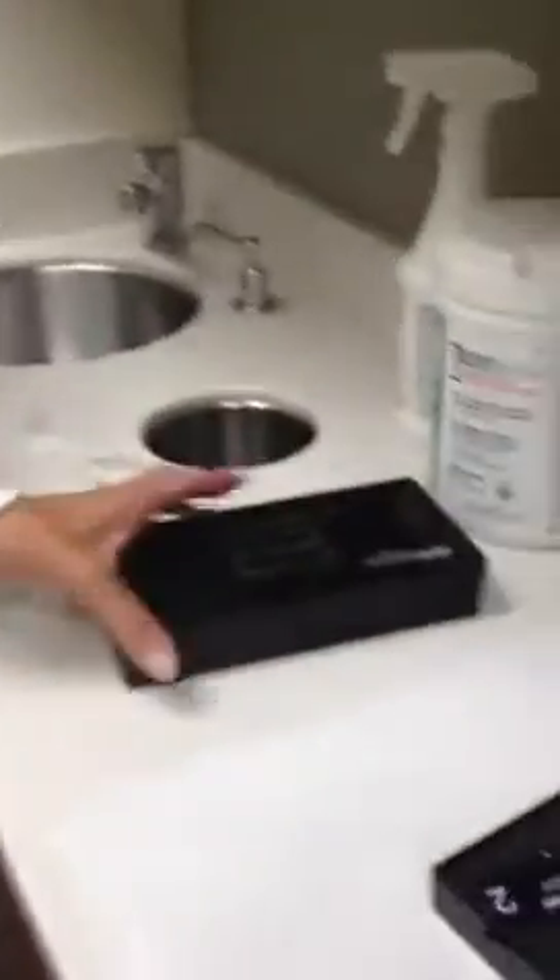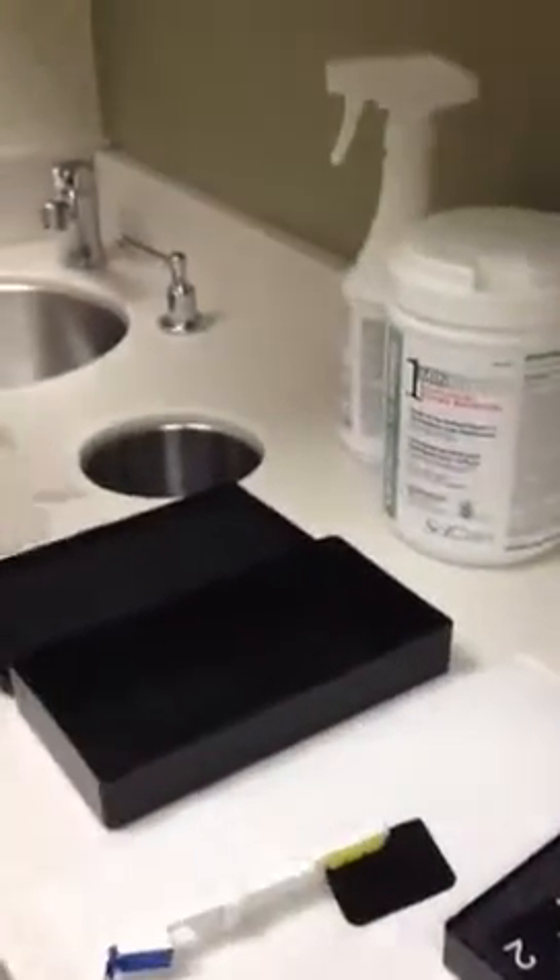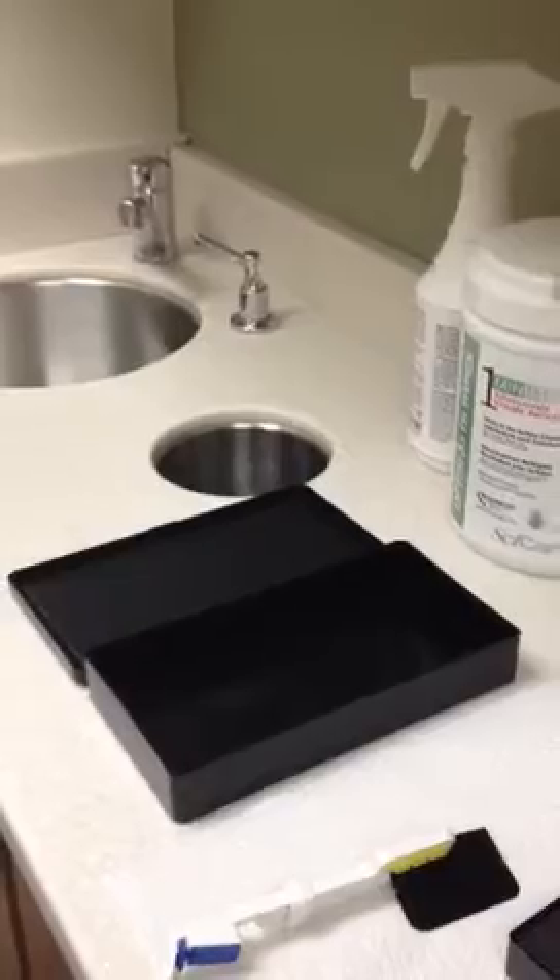You want to ensure that your plate transfer box is left open. I'm just going to put gloves on so that I can do the infection control piece after.